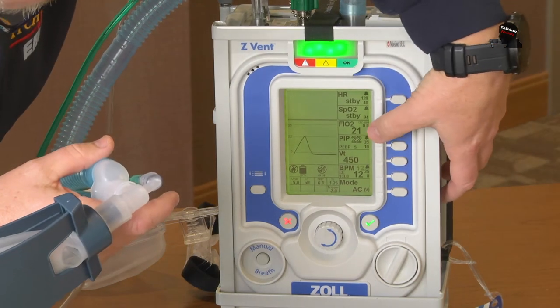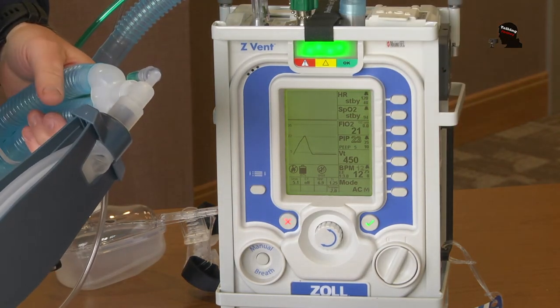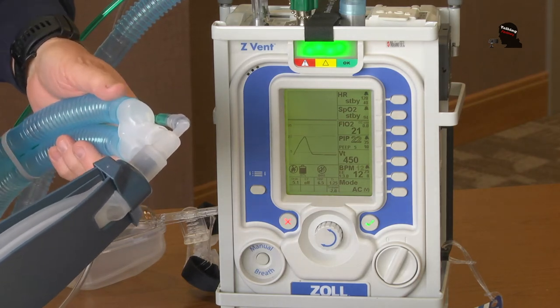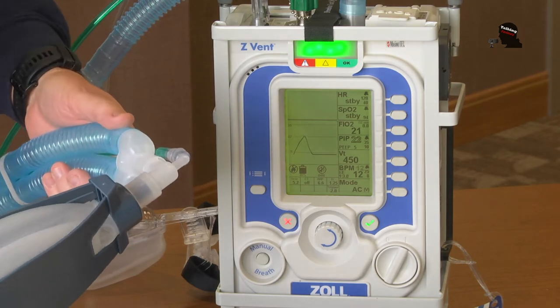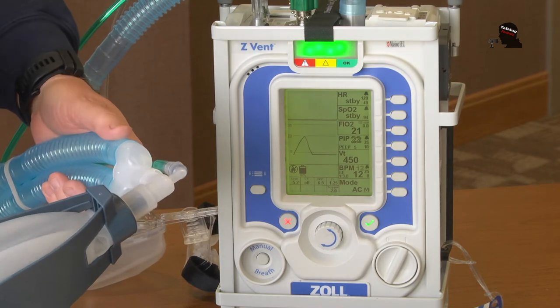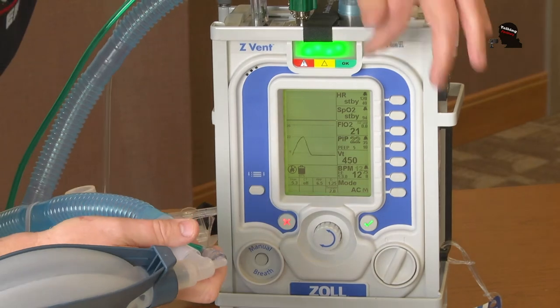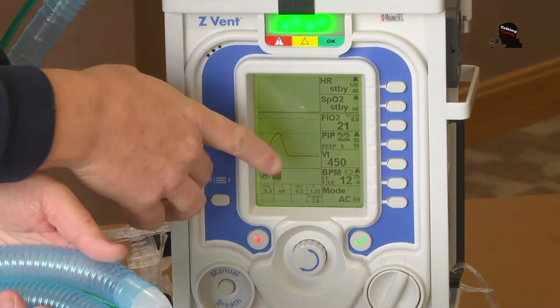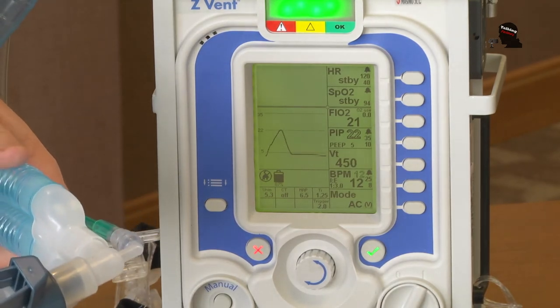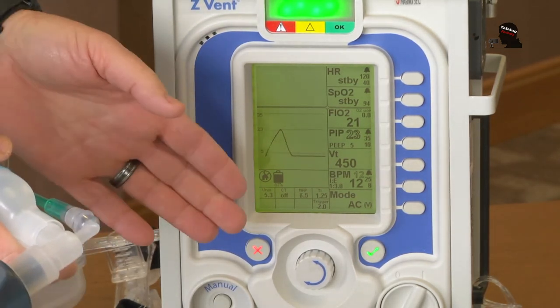We can make adjustments to what we call the fraction of inspired air, the FiO2. As normal humans we breathe 21%. For somebody with a low pulse oximetry or who is not breathing on their own, we can increase that to give them more oxygen — most of the time we'll increase it to 40%. There are also displays that will alarm if we need to provide airway management like suctioning, or if we have a leak somewhere.